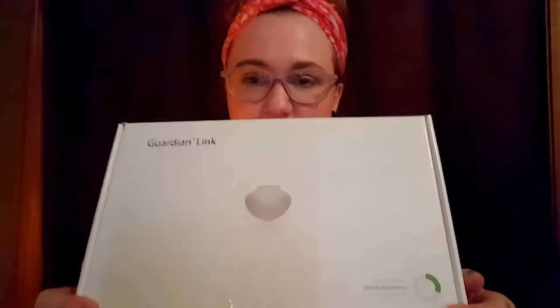I'm super excited to get a video out of me using this for the first time — we'll learn together. I wasn't given the transmitter portion of the MiniMed, but thankfully through social media and awesome people who also have diabetes, our T1D community, I was gifted this Guardian Link transmitter.